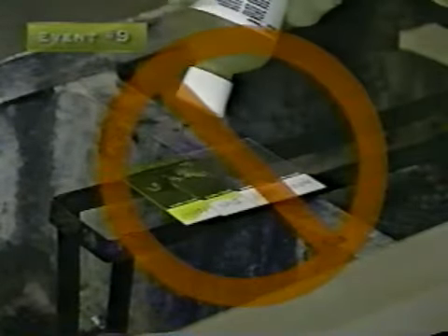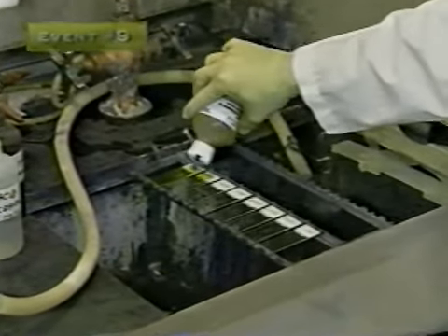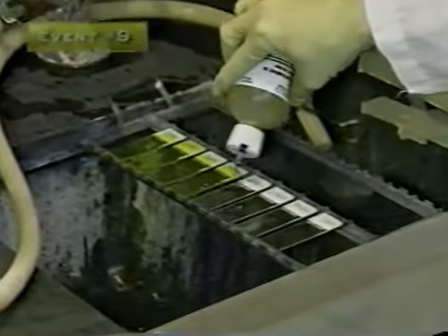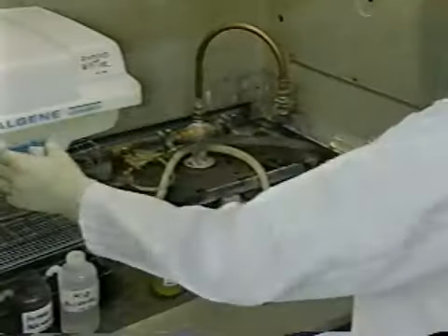If slides touch one another on the staining rack, particles or organisms can be transferred from one slide to another. In order to prevent transfer of organisms, place slides on the staining rack with sufficient space between slides to allow reagent fluid to readily run off into the discard pan. For the same reason, never use bulk staining methods for acid-fast microscopy.